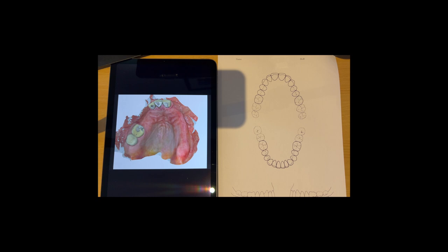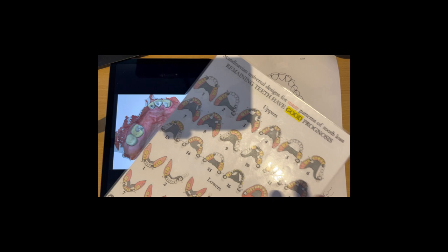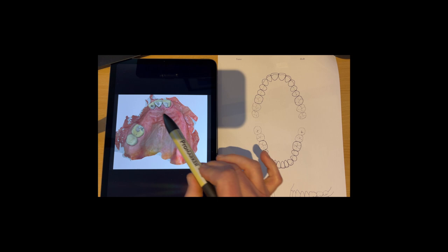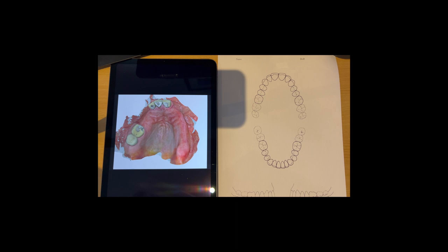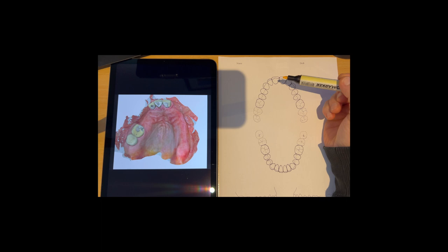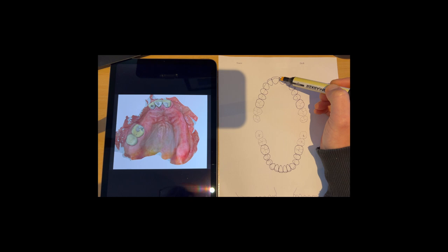There are so many combinations of missing teeth, you can't really cover every single base with protocols like this. That's why when I'm treating my own patients, I always design it individually, even though it may correspond exactly to a design that I have on this universal design sheet, because there are subtle things that are relevant to each single case. So first of all, what I do is I'm going to color in the missing teeth. We've got two centrals here and a lateral incisor, and a missing canine.